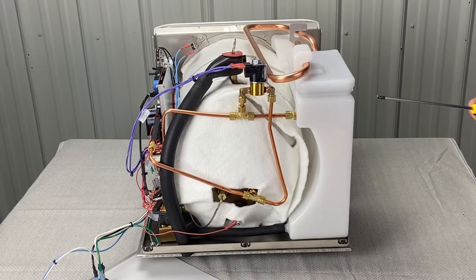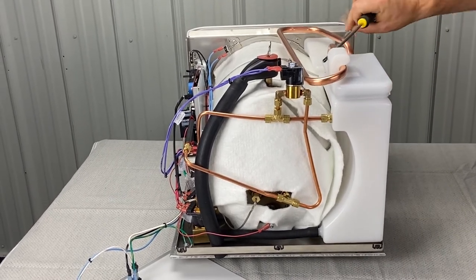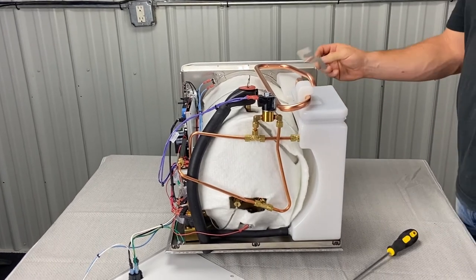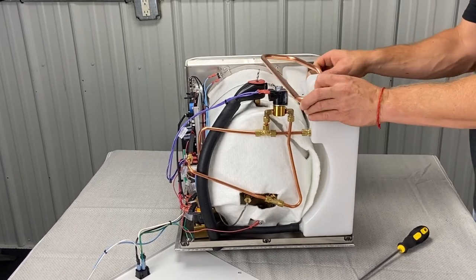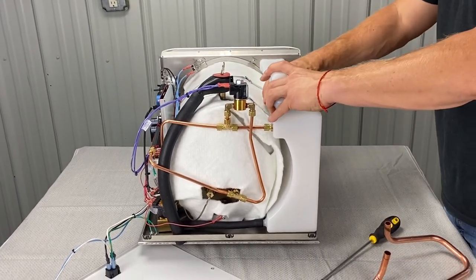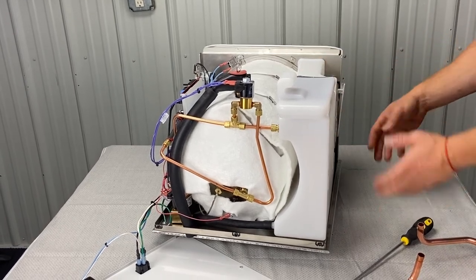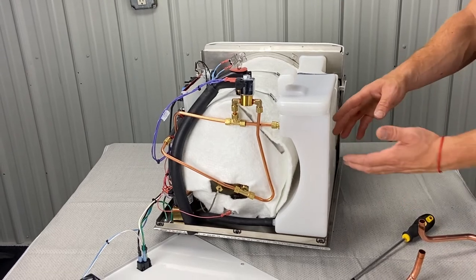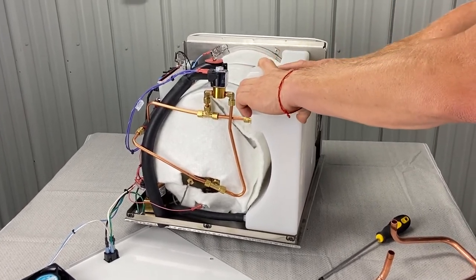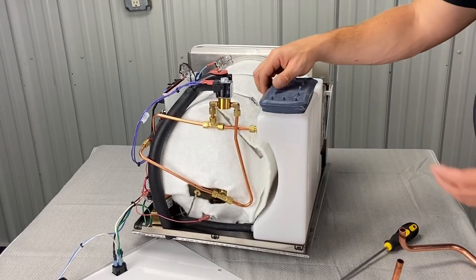It wouldn't hurt to give it a visual inspection from time to time, or send it to a certified qualified service technician. This is what holds the condensation coil — this is another coil here. This basically just comes off and you wiggle it loose. Then this is the cover for the reservoir — I would clean this. If the person who buys this unit drains the water weekly, they'll barely ever have to clean this reservoir. A lot of people don't clean the reservoir or follow their weekly and monthly maintenance instructions — they just keep adding water on top of old water, and it builds a biofilm that clogs valves, putting you in for more of a hassle.